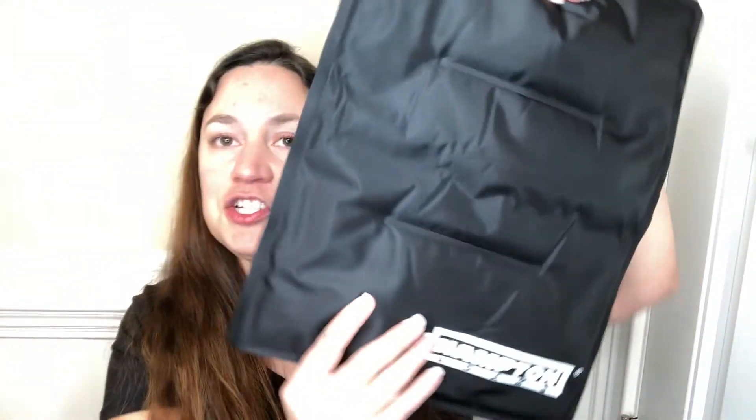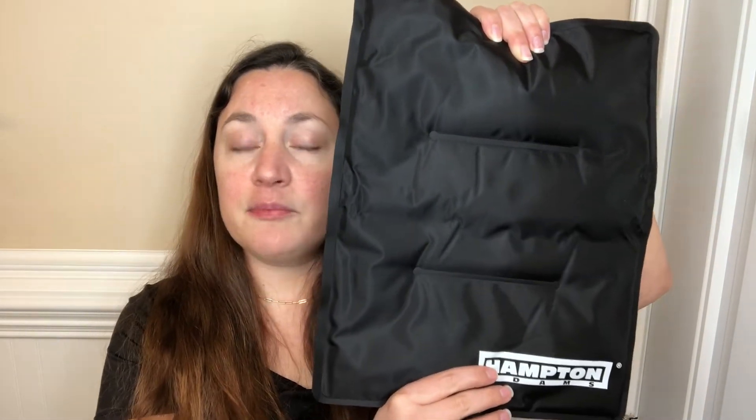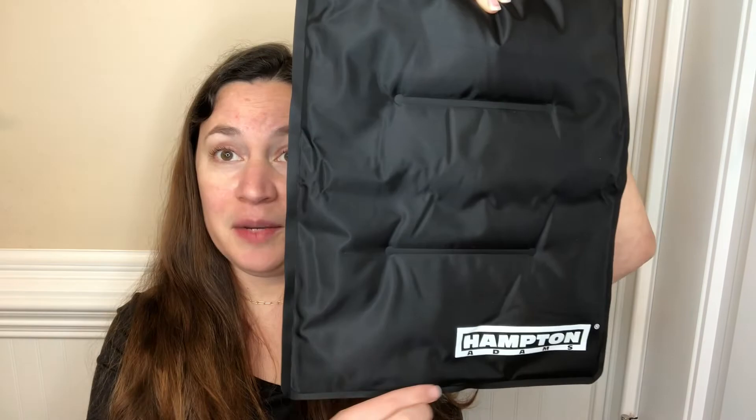It's a really nice size — as you can see here, it is actually 11 inches by 14 and a half inches. It's made really well. It has premium therapy gel and double embossed seams, so there's not going to be a goo explosion.